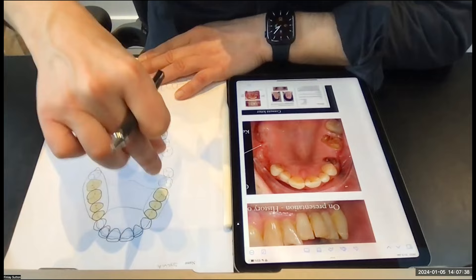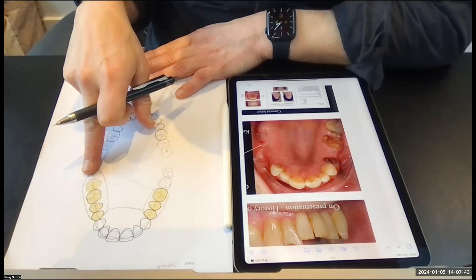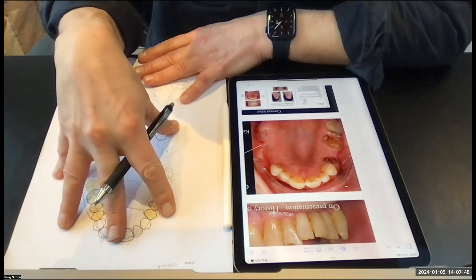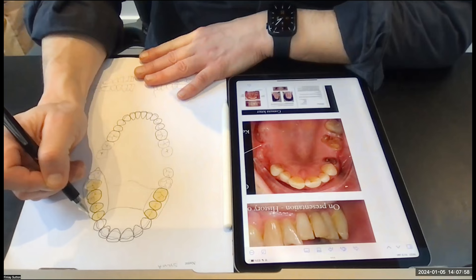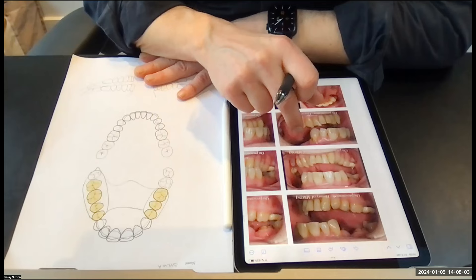I'm going to put a ring rest that sits all the way over that tooth and protect it. So we've got various things here: we've replaced the saddles so far, we've got all of our supports, we've got a major connector — so we've got the overall shape of the denture. Now one thing I don't have is retention on this denture at the moment, so I need to draw on some clasps and work out where they're going to go.